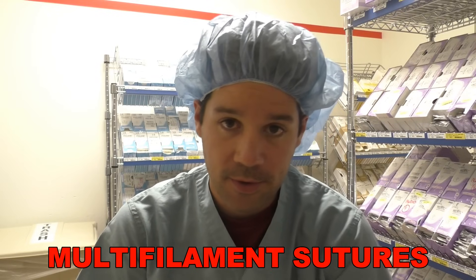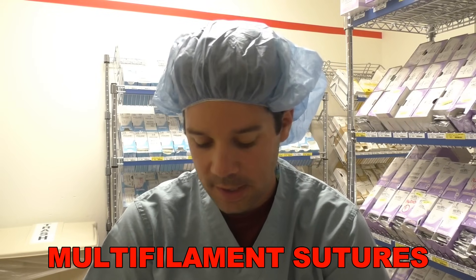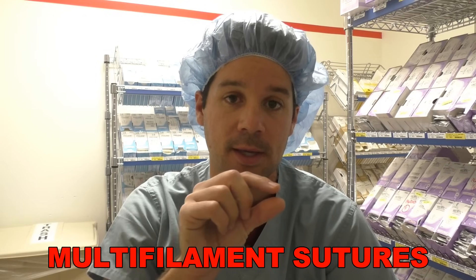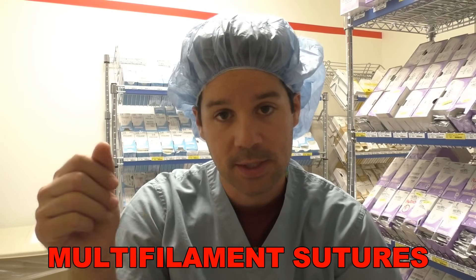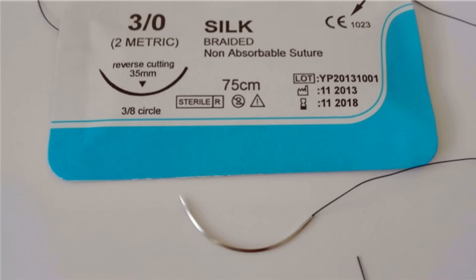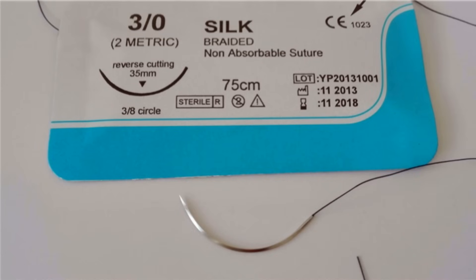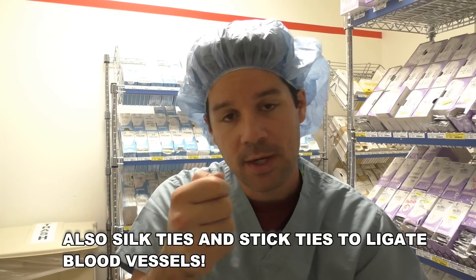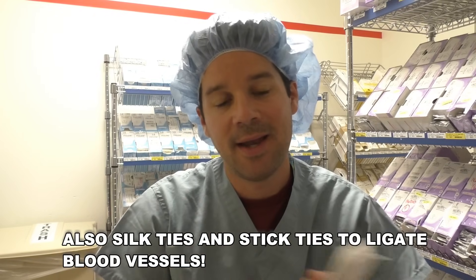Multifilament sutures — I want to talk about those first because there aren't a lot of them. Looking through this whole suture room, there are only four different multifilament sutures. Remember, multifilament is single filaments strewn together and twisted — it's a braided suture. The first multifilament suture is silk. The silk suture is non-absorbable, multifilament. The packaging is kind of bluish-greenish, and the suture itself is black. Where I see this used most in my experience is chest tube stitches — they put a stitch right next to the chest tube, tie it, wrap it around the chest tube, and tie it again to make sure the chest tube can't be yanked out by accident.